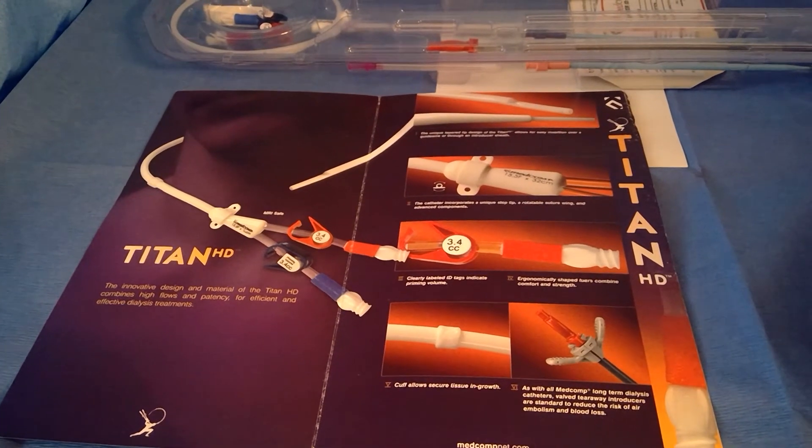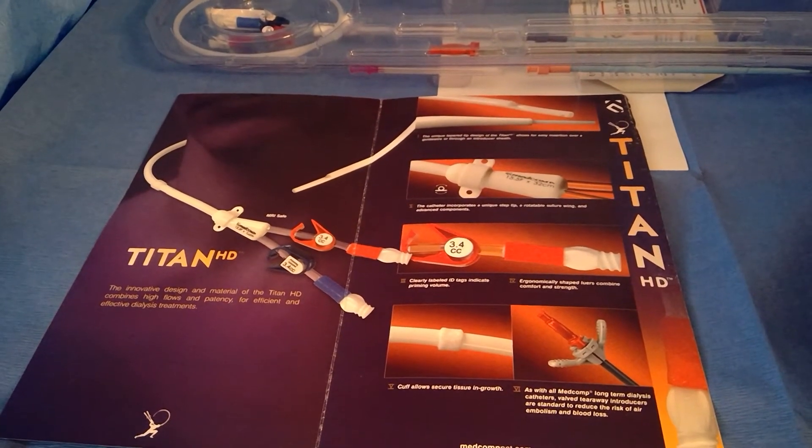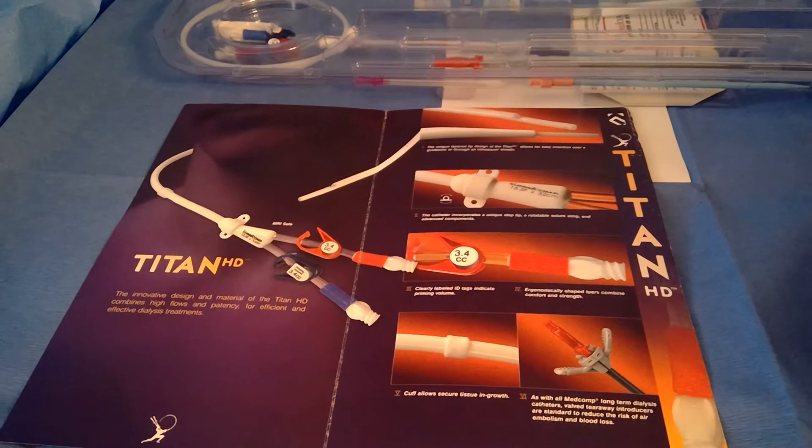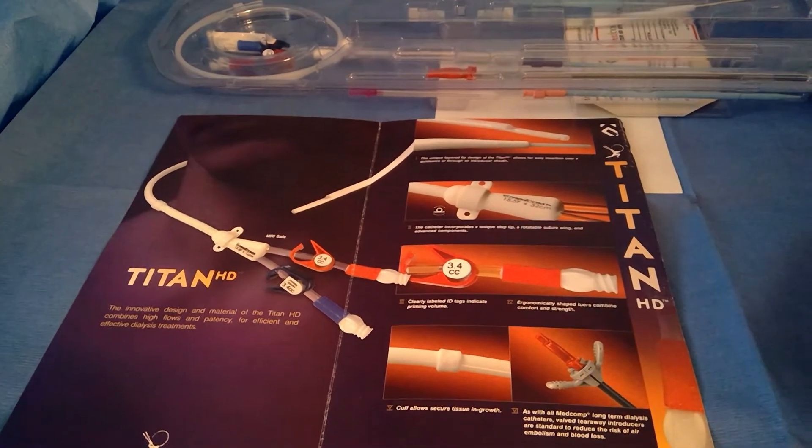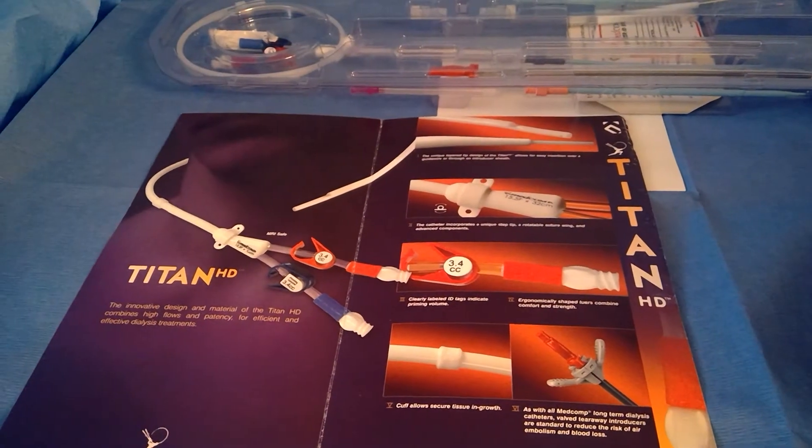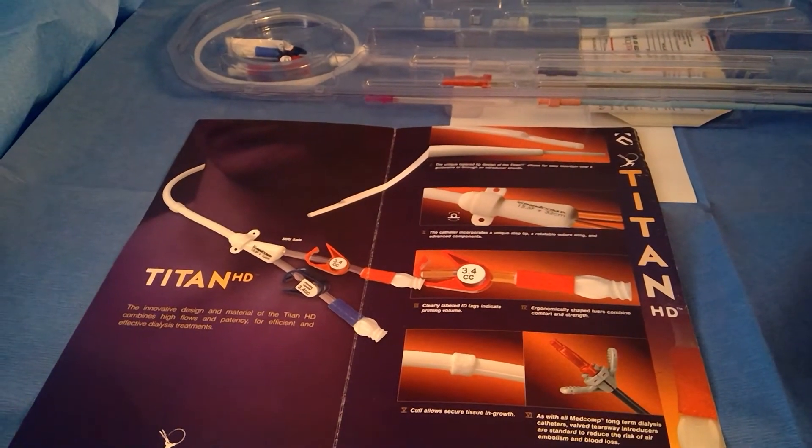It's a great step tip catheter if you're using step tips. It's 15.5 French, comes in a variety of sizes, and includes the air guard sheath and a stiffening stylet to aid in doing catheter exchanges.